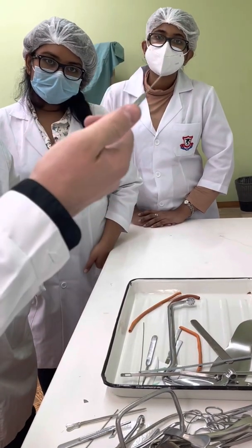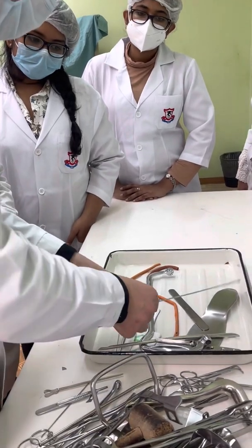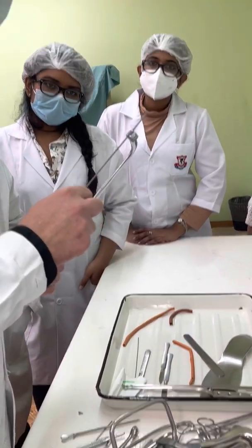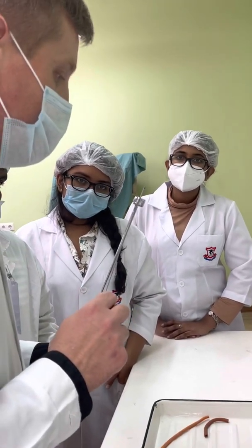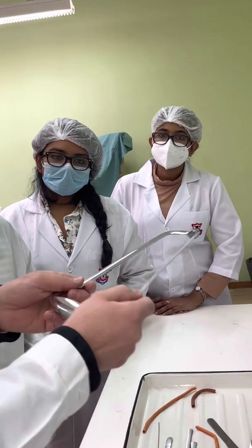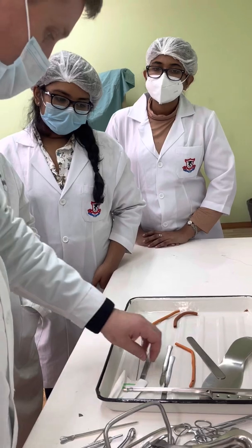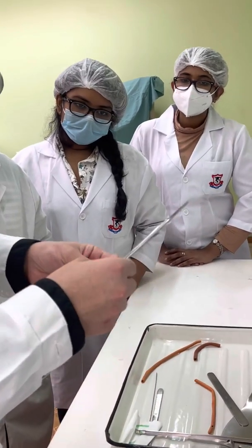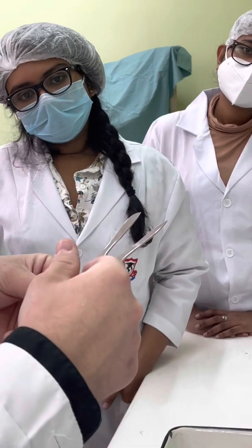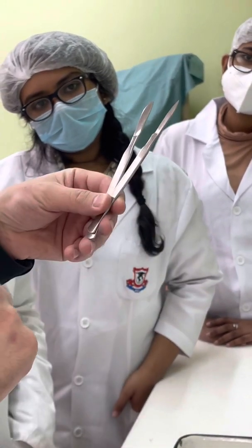Here, surgical saw — it's for cutting of small bones. Here, one more type of surgical saw. Full metallic scalpels — nowadays we don't use full metallic scalpels, but we use both shapes: the lance shape and the belly shape scalpel.